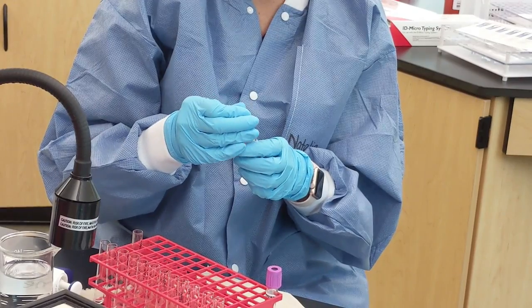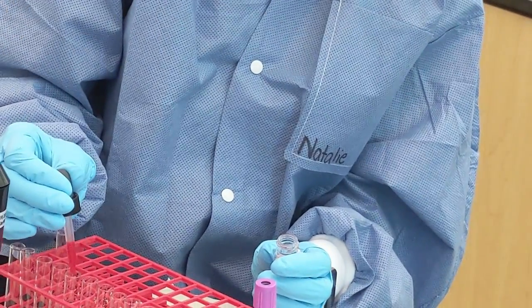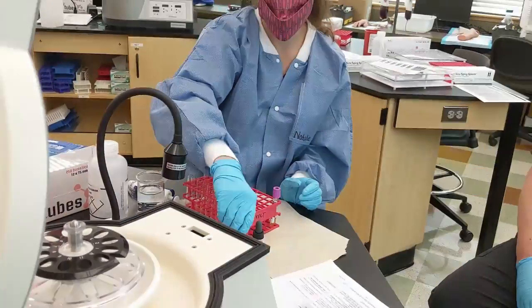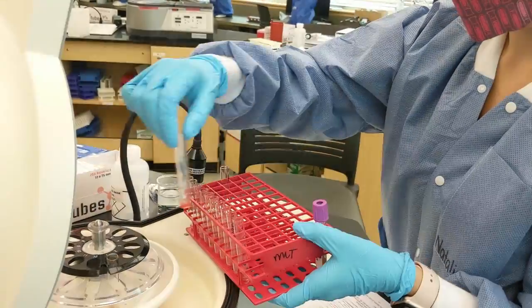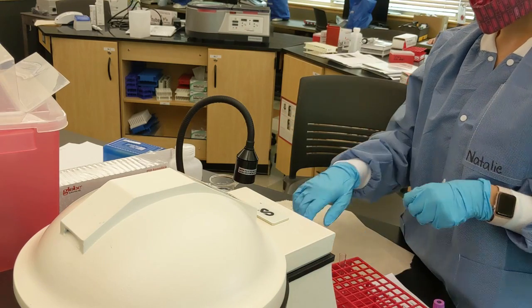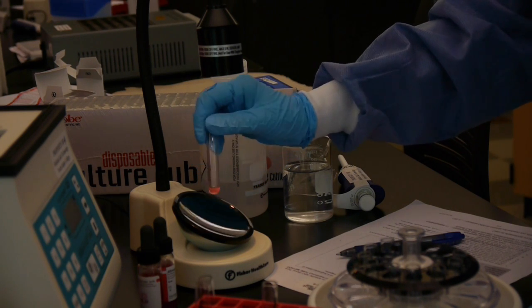She puts a drop of A1 cells into each tube, keeping them in order. Then she places them into the immunofuge — tube one in slot one, tube two in slot two, and so on — and spins for 15 seconds. Then she patiently reads each tube until she has graded all reactions through to agglutination.